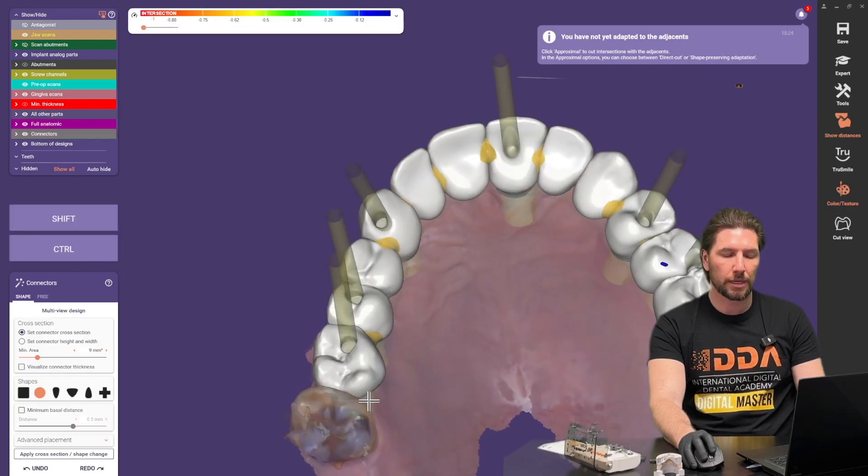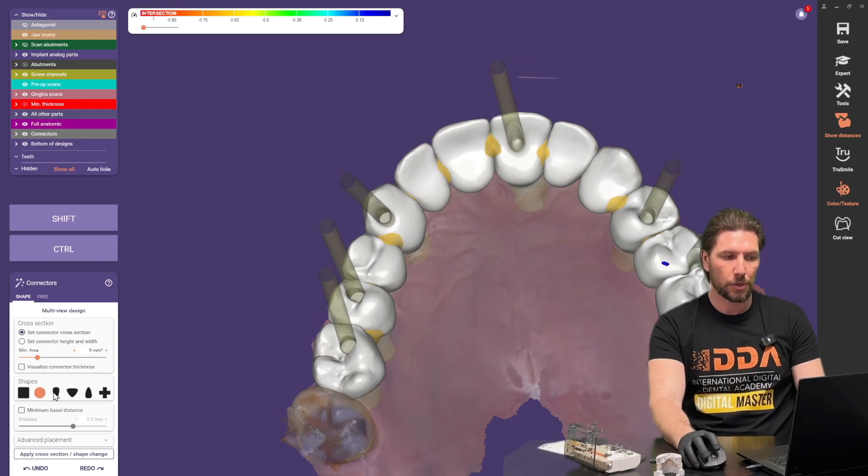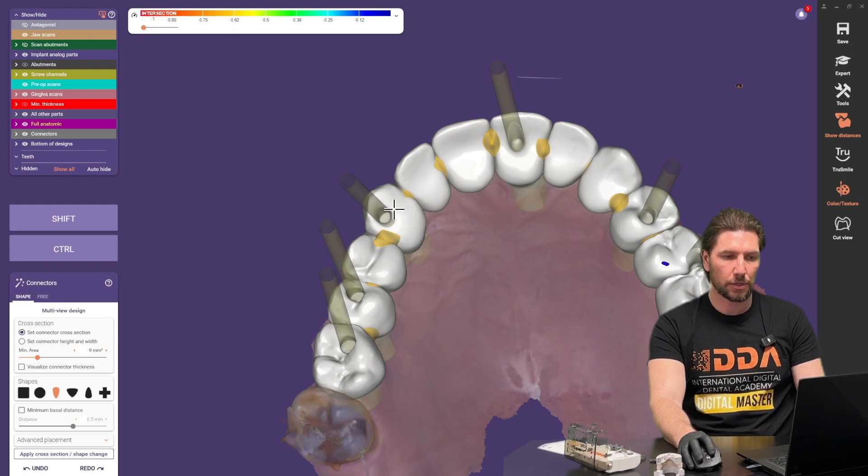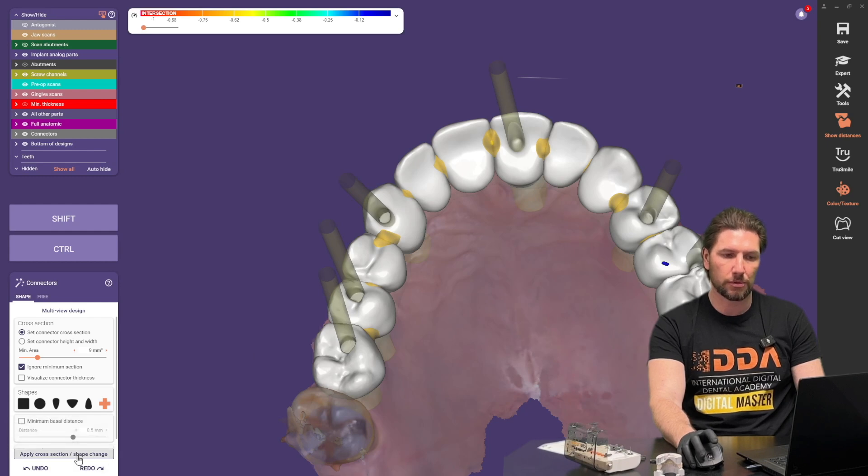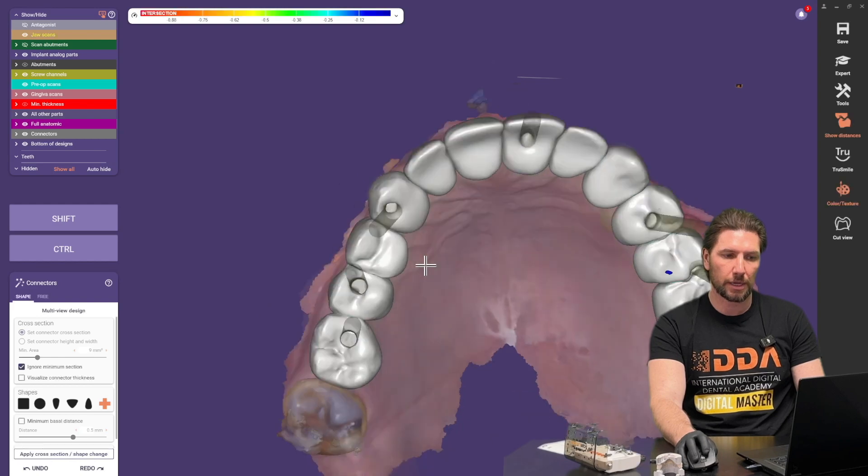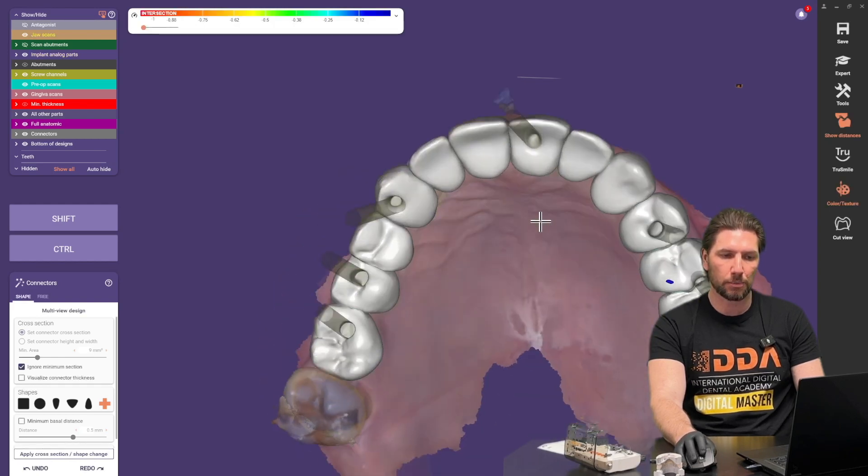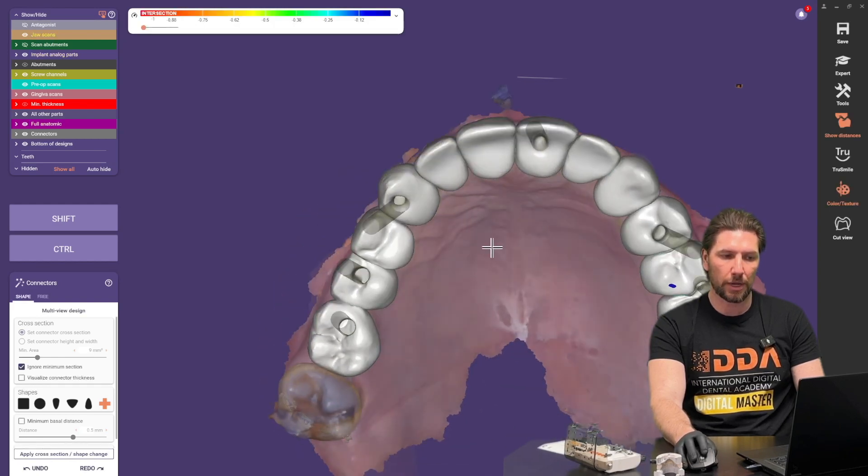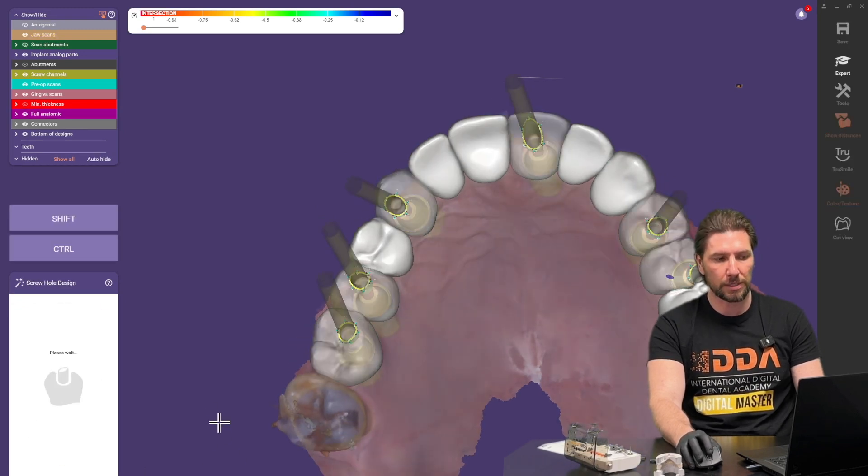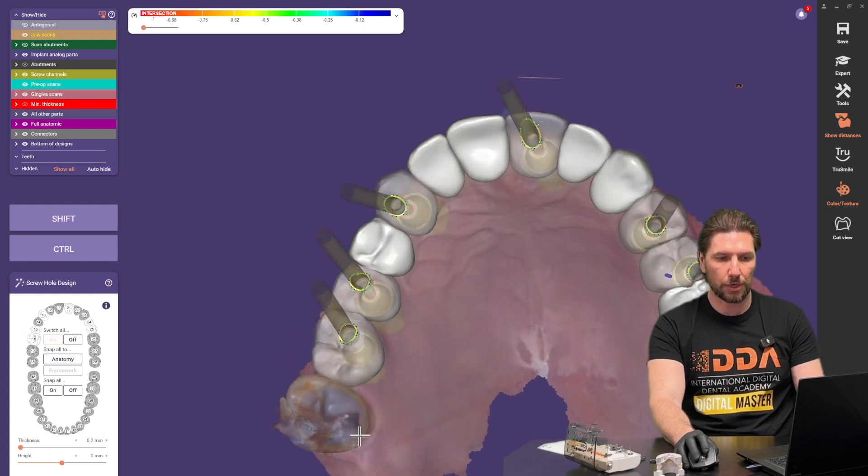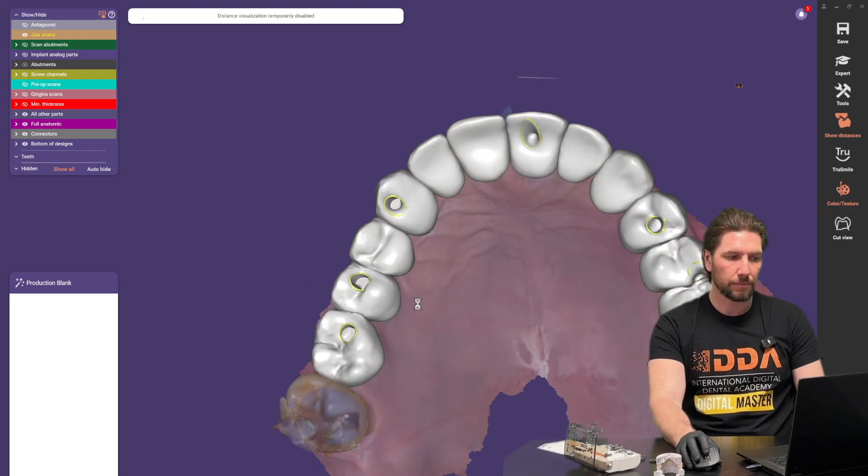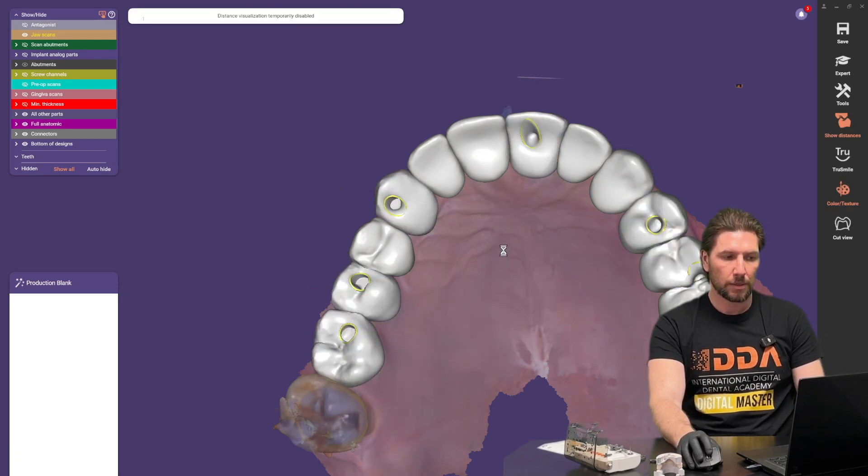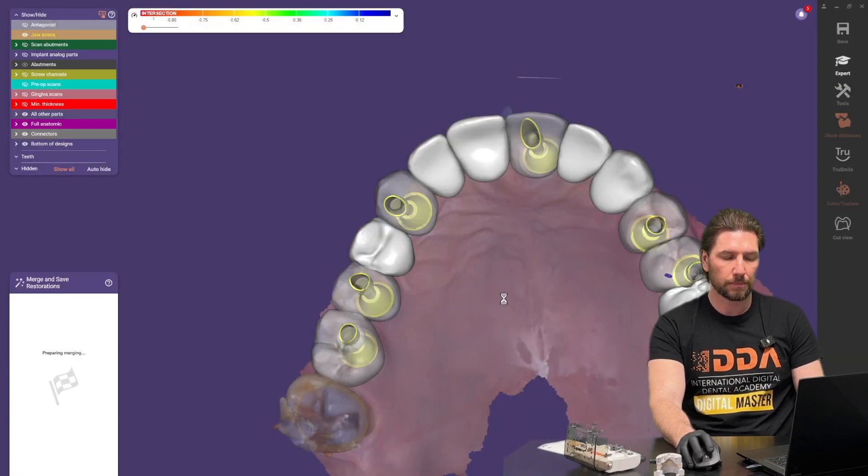If we click next then we get to design the connectors so my personal preference is the teardrop that can sometimes place them in the way a little bit in a full arch sometimes you want to just really have just smooth the shapes to direct to each other so if I adjust that you'll see now that that is a perfect contact without any specific connectors and there's a reason why I'm doing that because once I've created the screw channels which we've got here we're just going to cut away. Once we've got this final design then I'm going to go and adjust the finished shape.